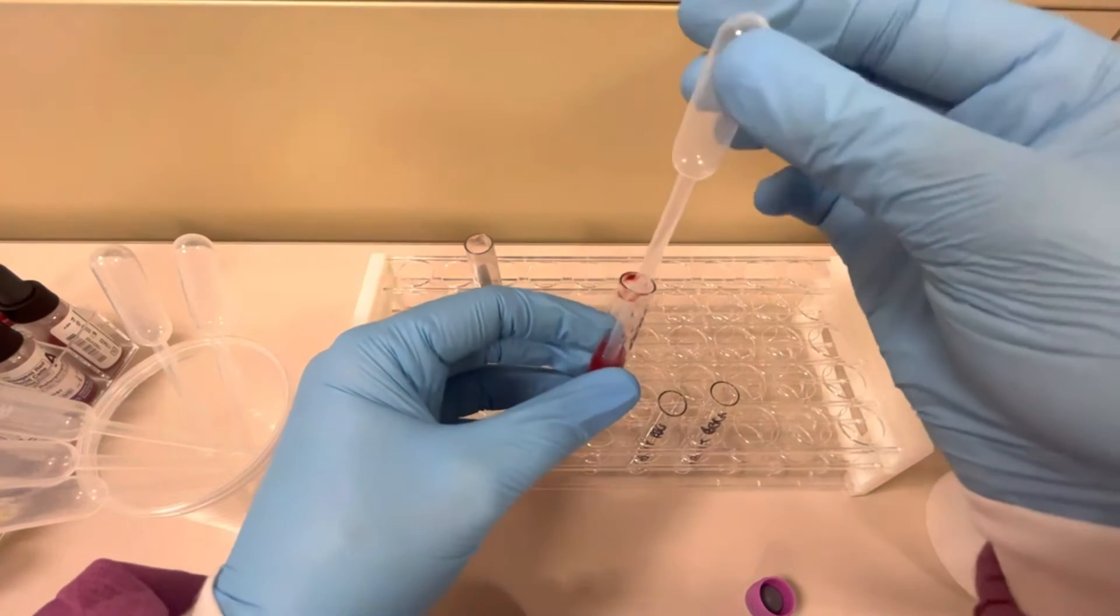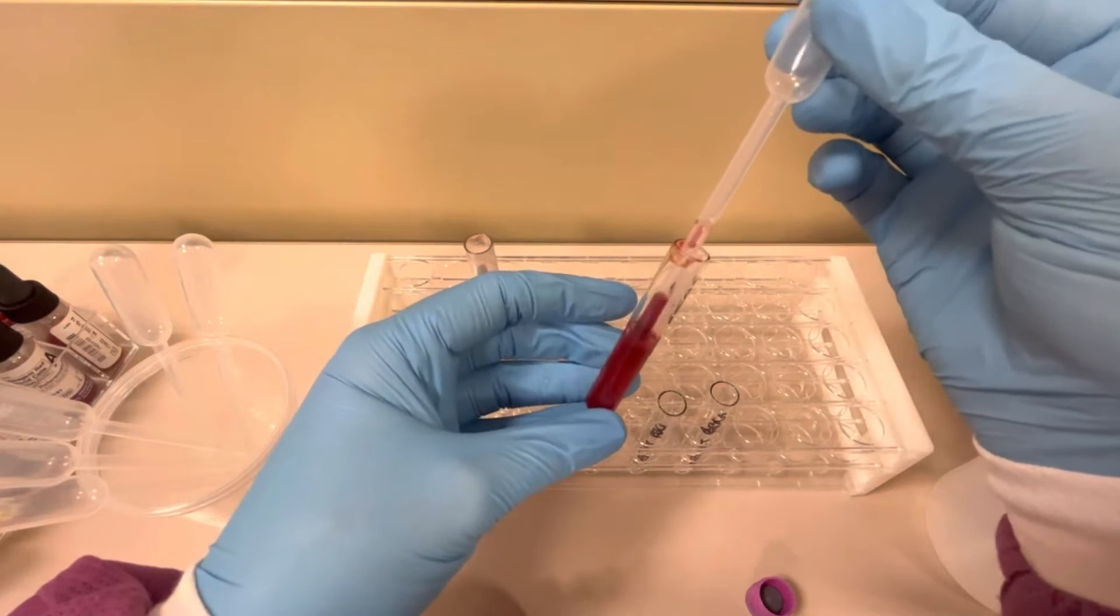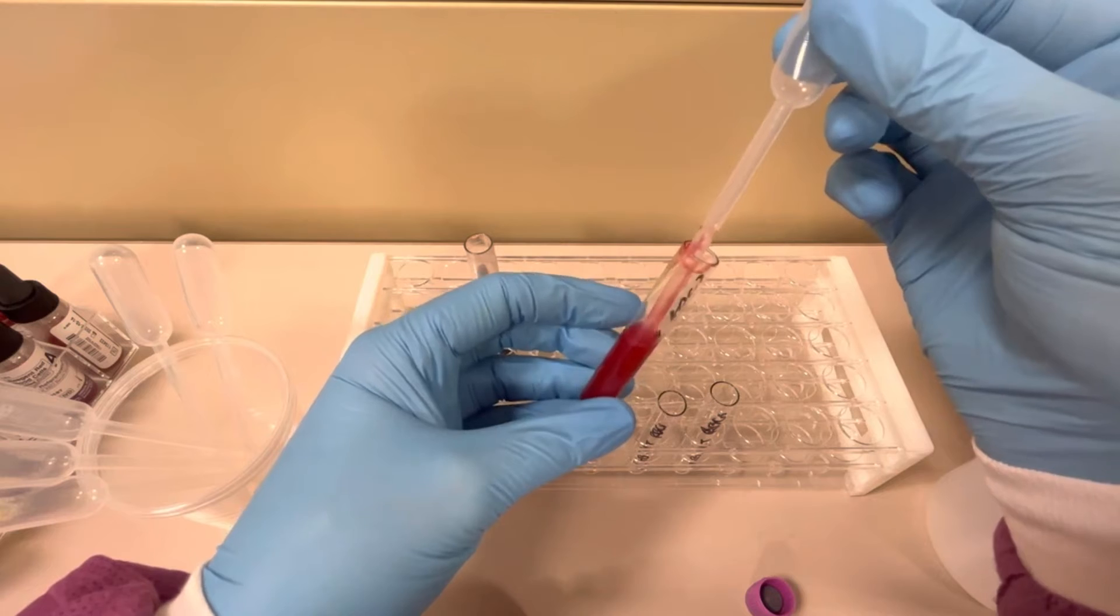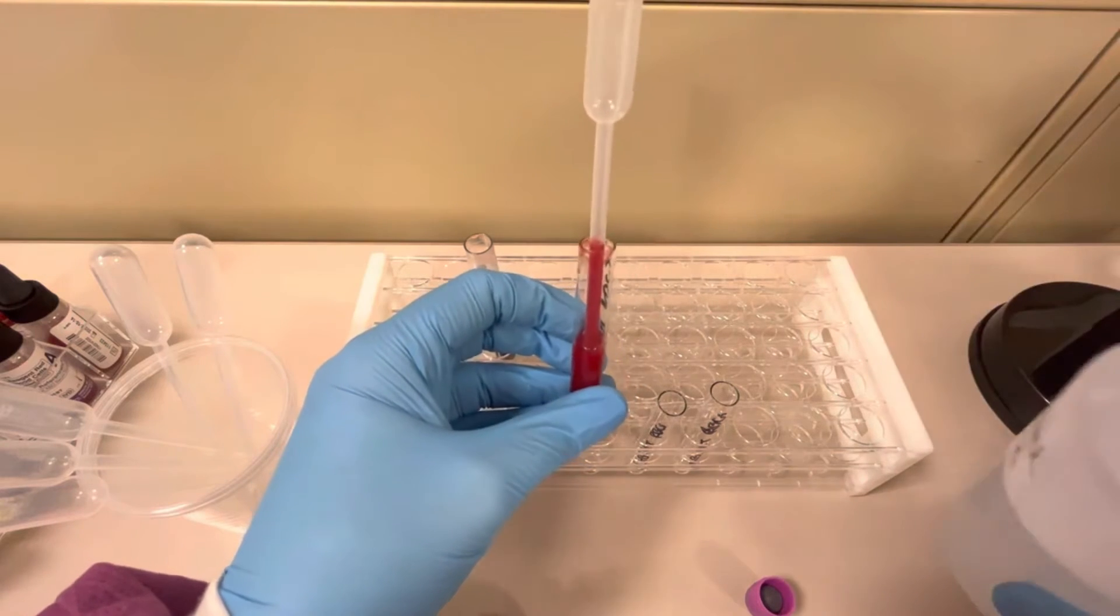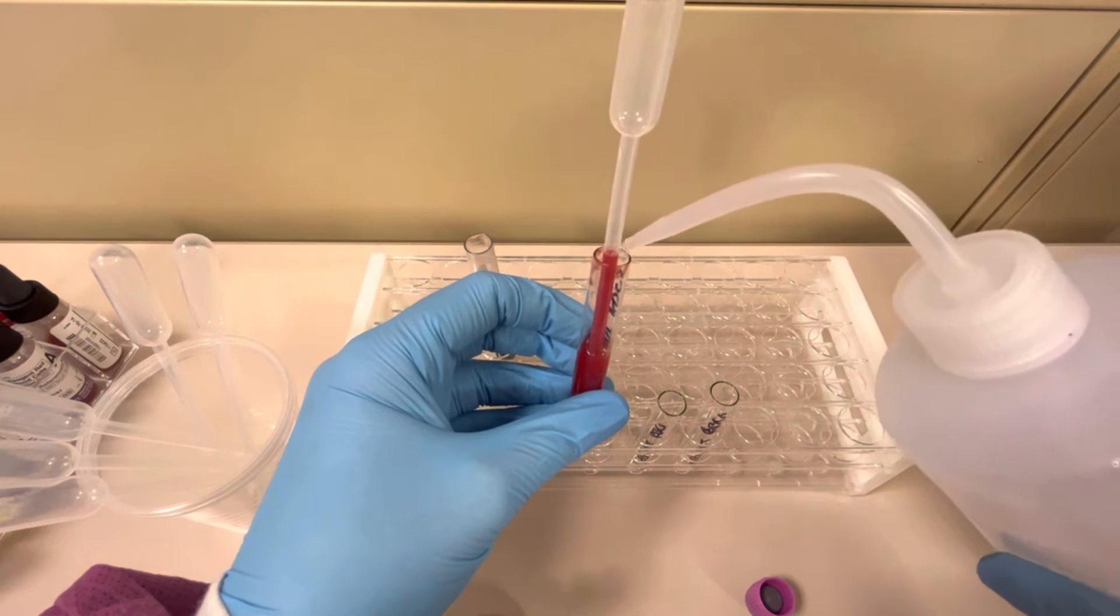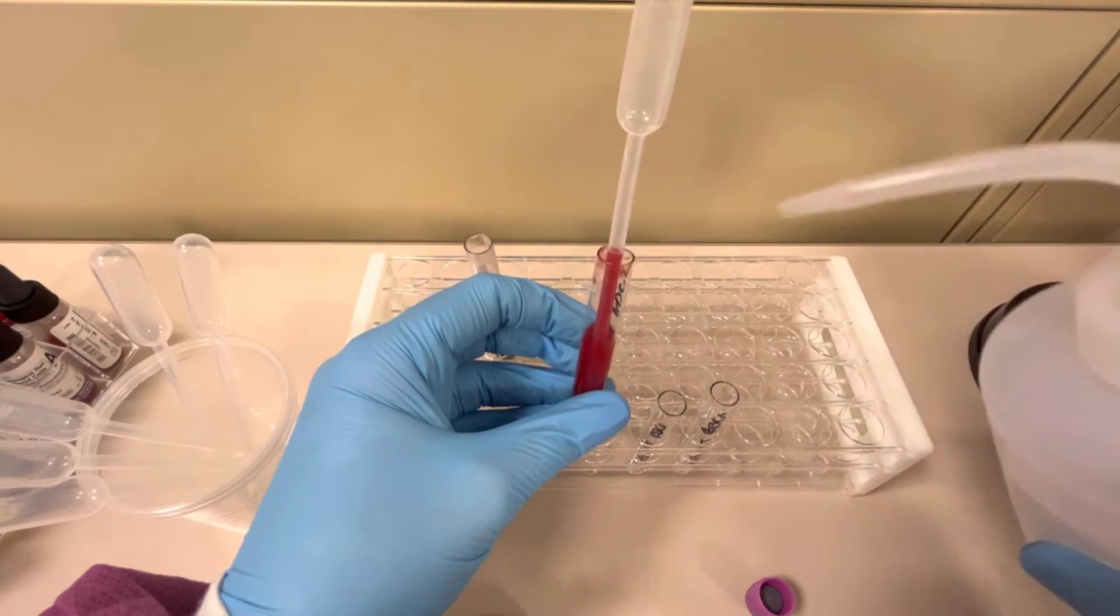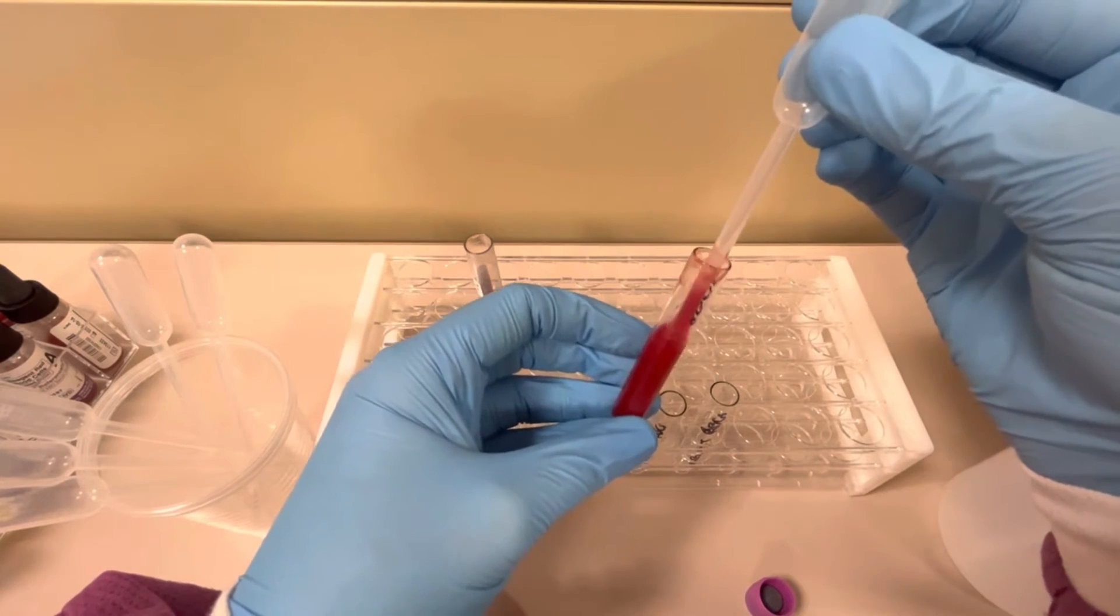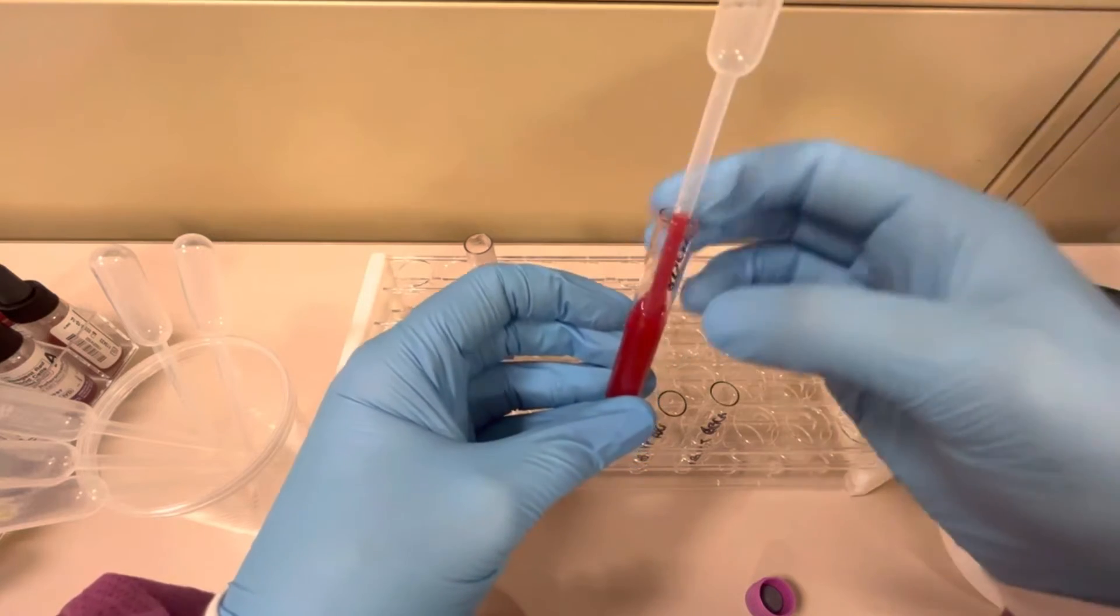Let's take a look and then I'm going to gently mix it up. I could use just a tiny bit more saline. You can always add more saline if need be. You can't really take any out. There we go, perfect. I'm going to mix it up. This is a beautiful suspension, probably about three percent.